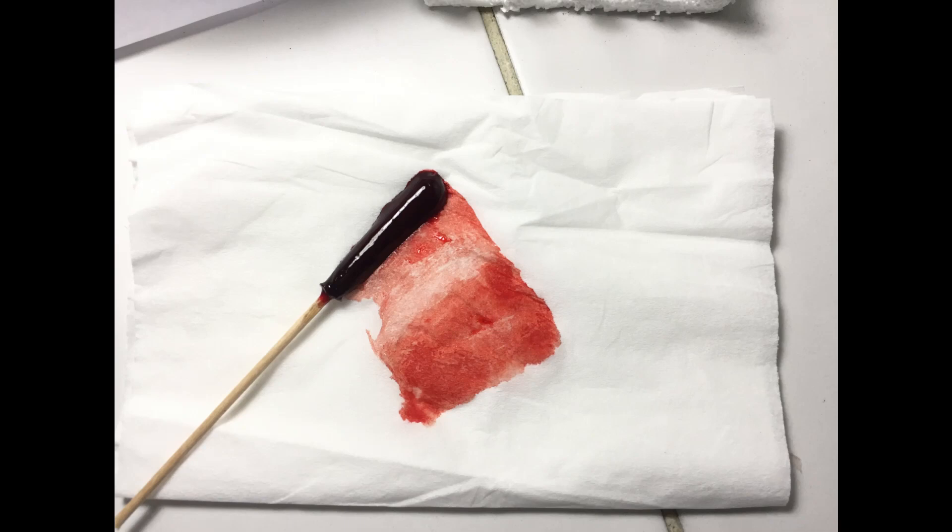Take note that after pulling the stick or rod and removing the clot, if the volume of the serum remaining is half the volume of the collected blood, then complete retraction has occurred.